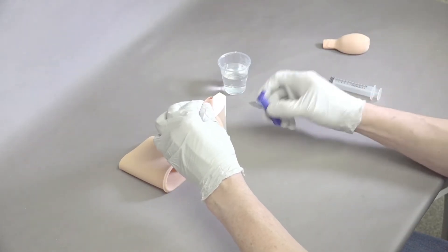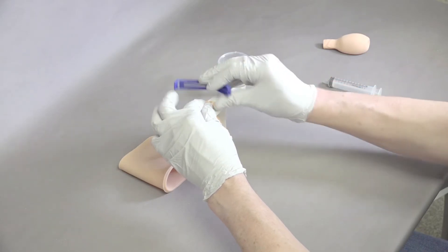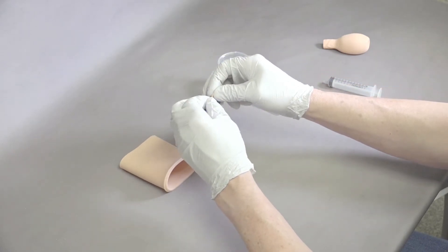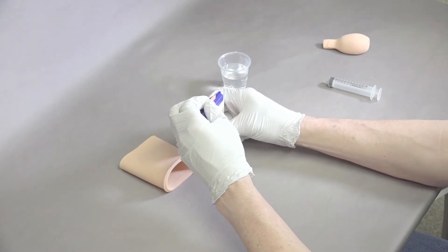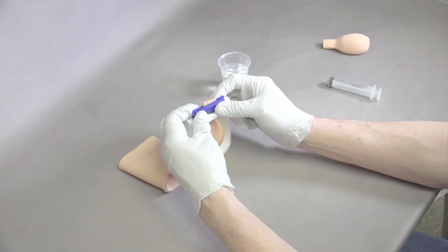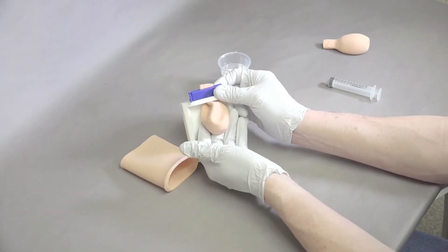Place the clamp over the top so it's ready to clamp. Hold the bladder and clamp until we get the air out and water just starts coming out. Now we've got just water in here, a moderately filled bladder.